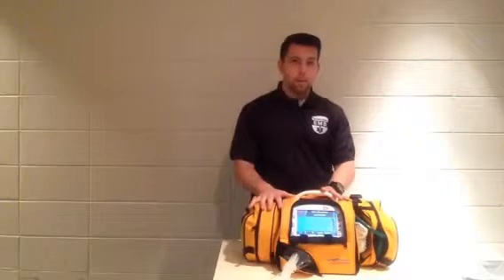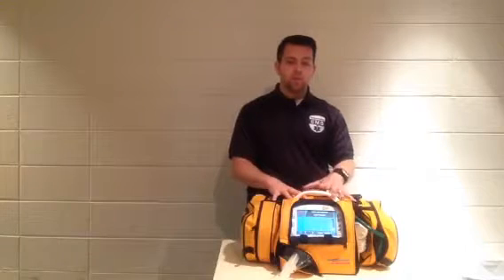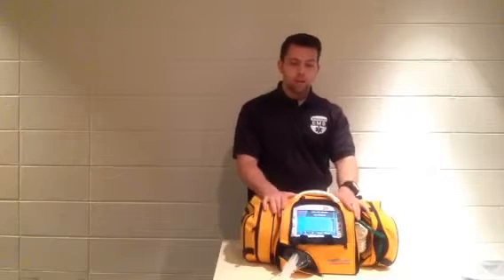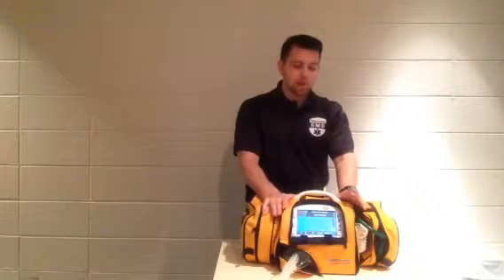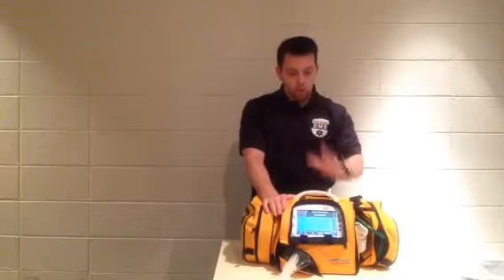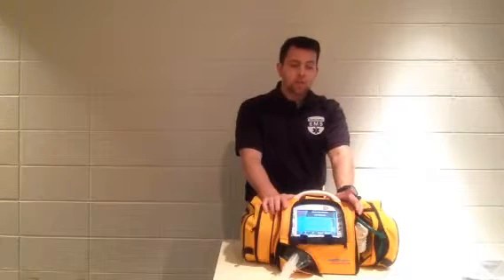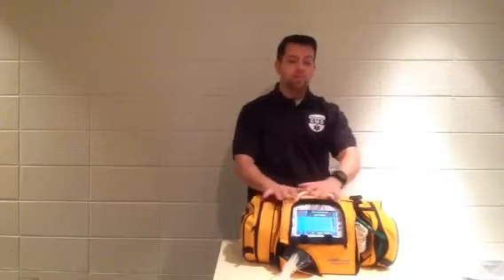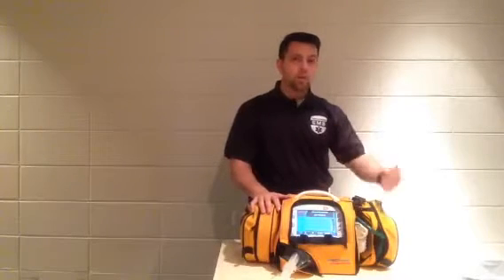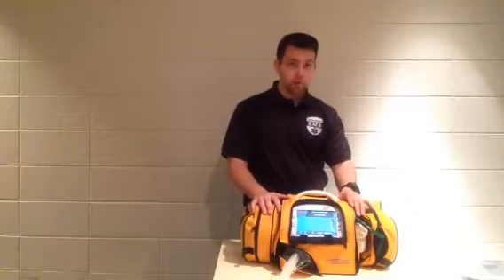A final note about the battery is that it will reliably last you 5 hours. What I'm going to tell you is always be conservative. You always need to have a backup plan. So your backup plan is not necessarily bringing another ventilator. Your backup plan would simply be, for any transport where you know that patient's going to be on the vent for more than an hour and a half, bring the AC adapter. That way, if for some reason you're really sucking down battery life faster than you expect, then you certainly have plenty of battery to offload and onload, and you can simply plug them into the sidewall on AC for your actual transport.